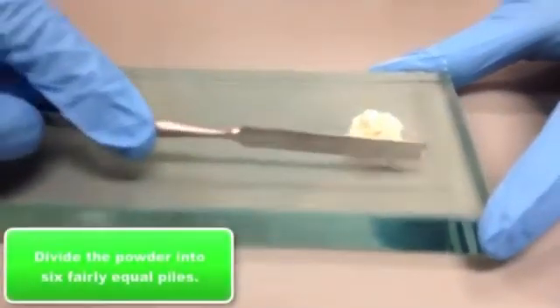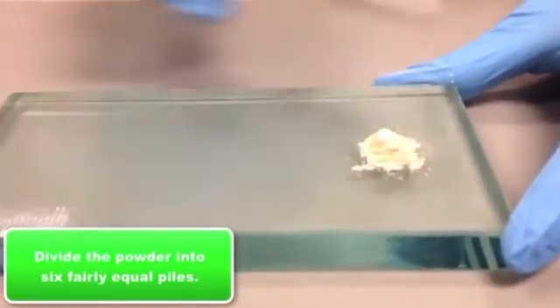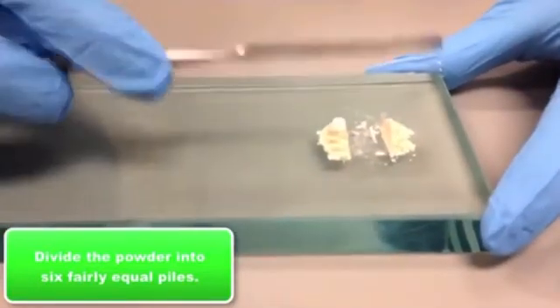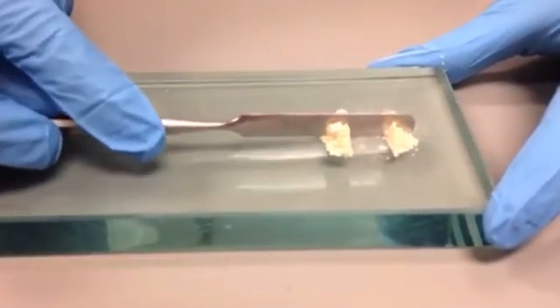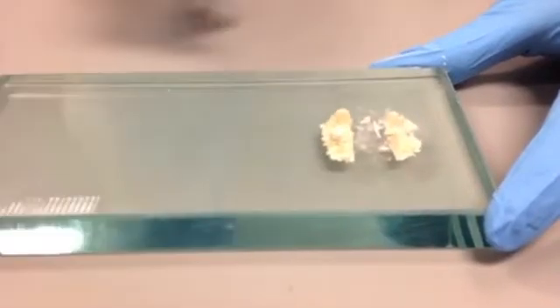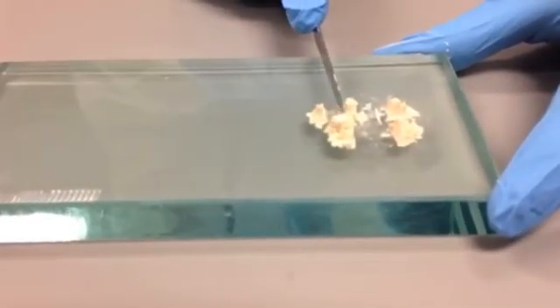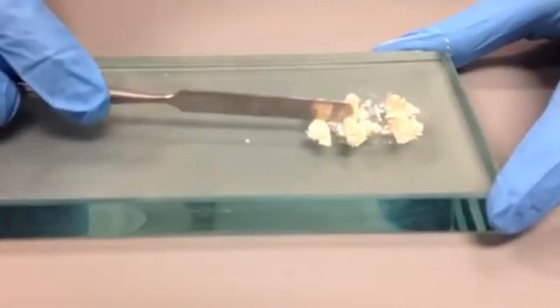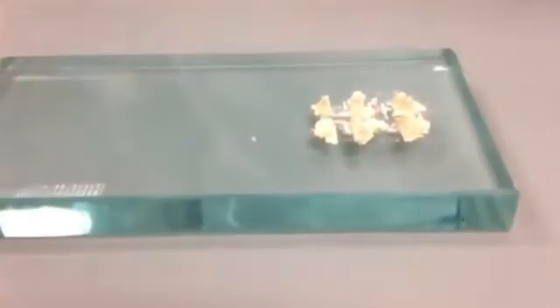And now you'll see she's dividing the material into about six fairly equal portions. You can start by first dividing them into four and then she'll take some extra from one of the piles. So now that you have about six piles to go with.